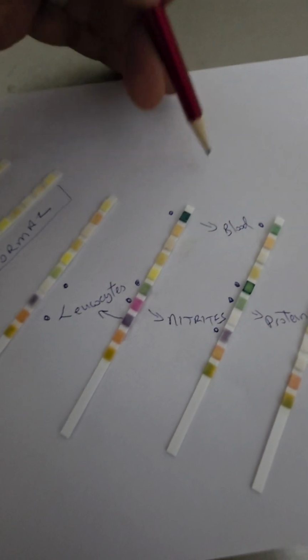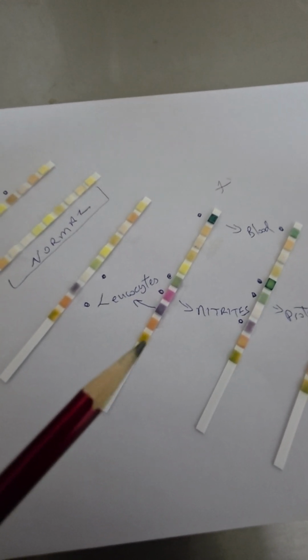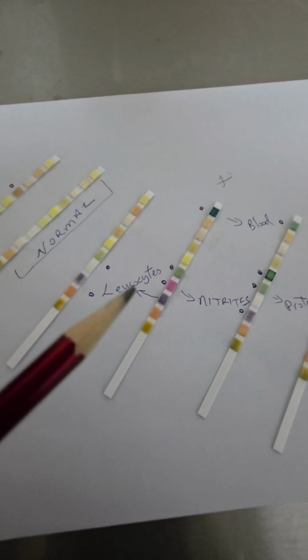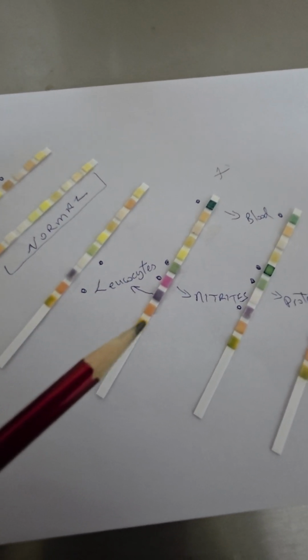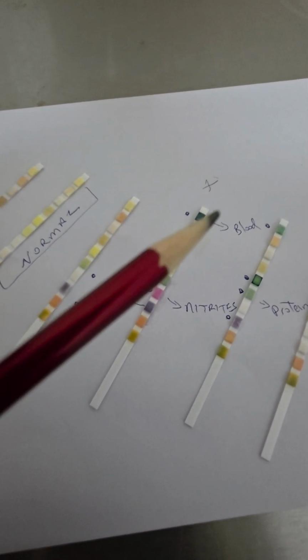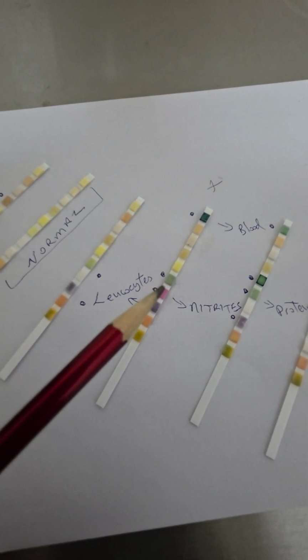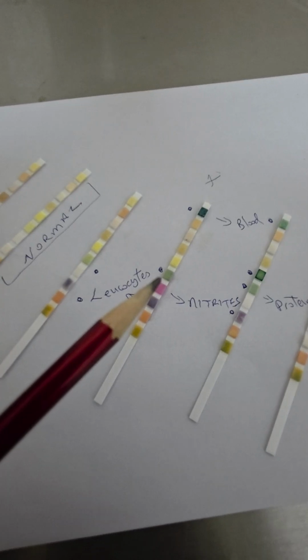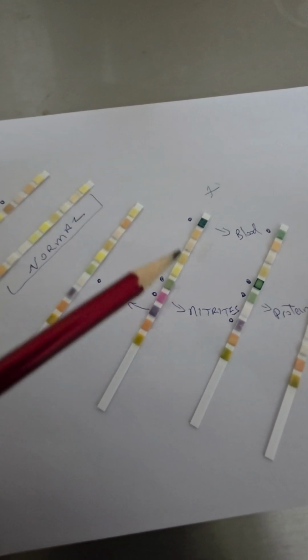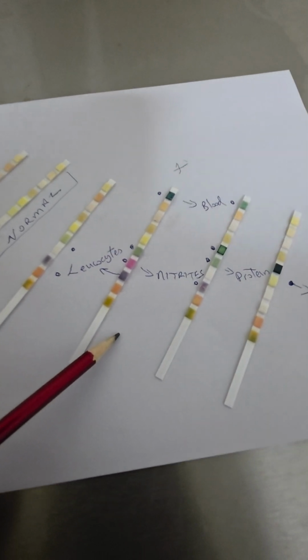With this urine, we can make some inferences, but the rest is in the hands of the doctor. This patient possibly has a serious urinary tract infection with some issues that is causing blood, what is called hematuria. The hematuria may be causing the protein, or the protein might be a culprit on its own. We wouldn't know until the presence of blood is gone. So much can be found from urine testing.